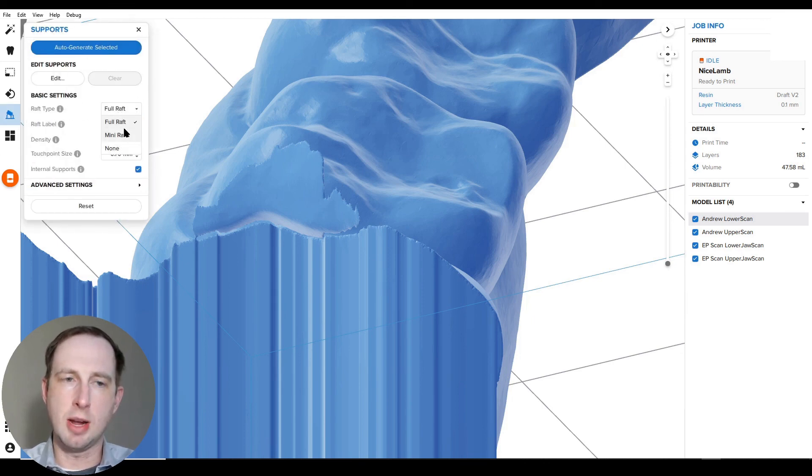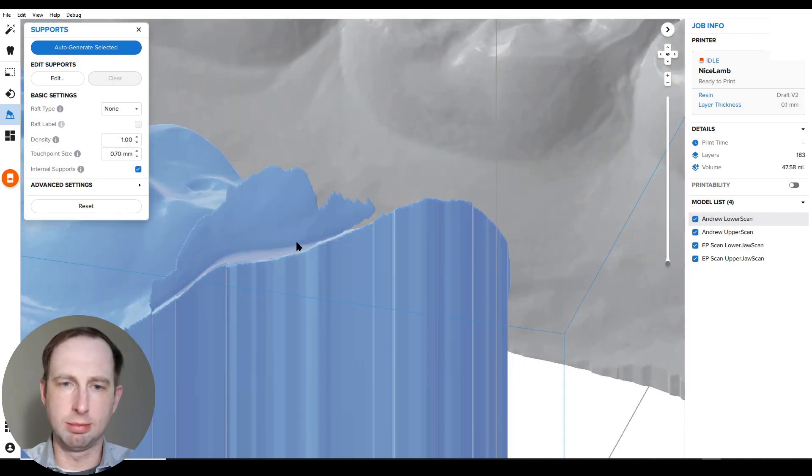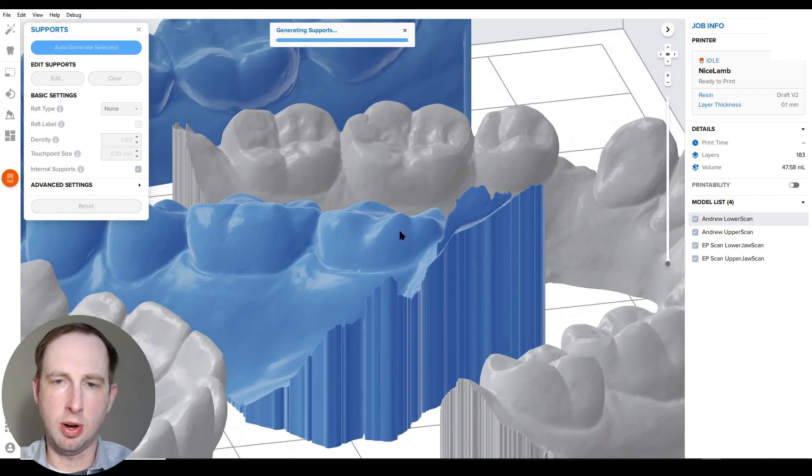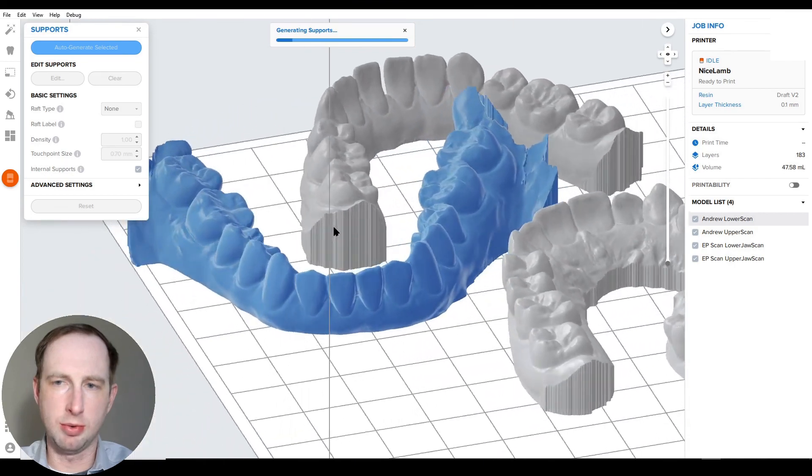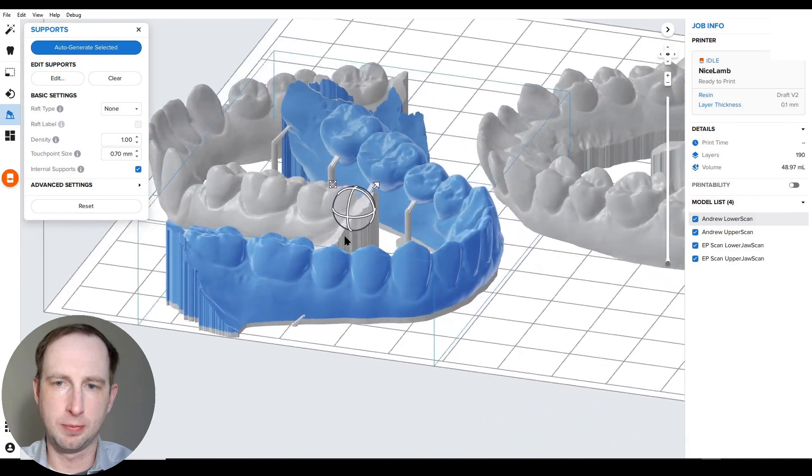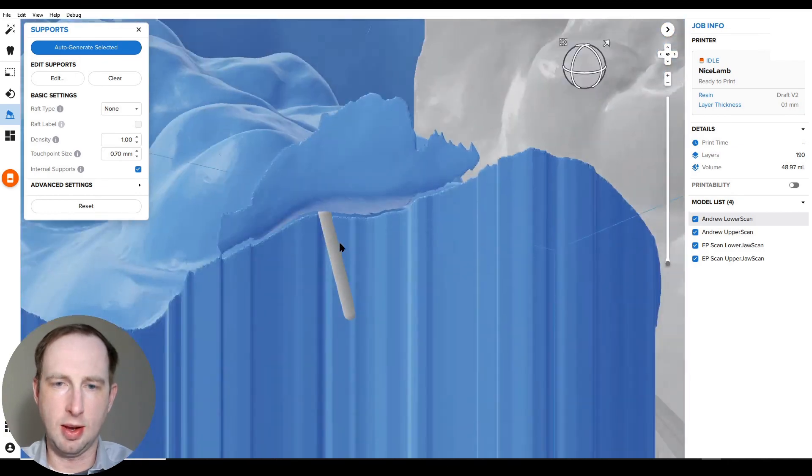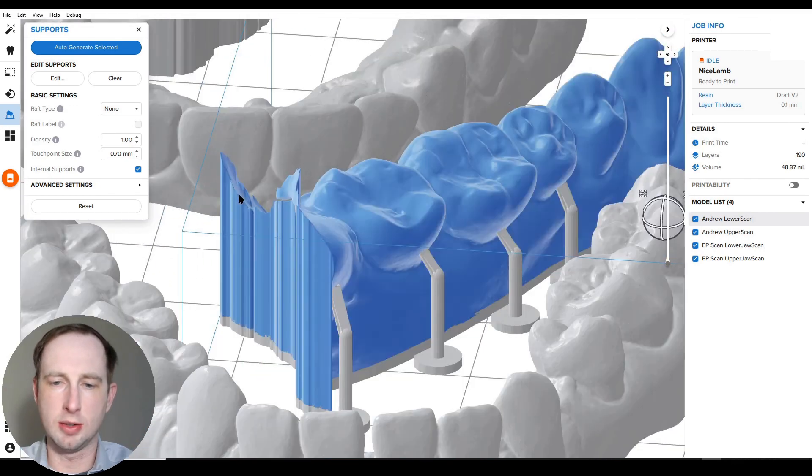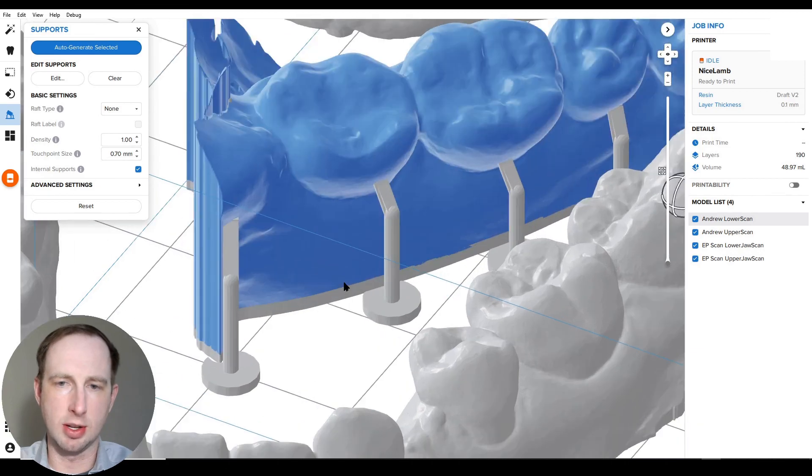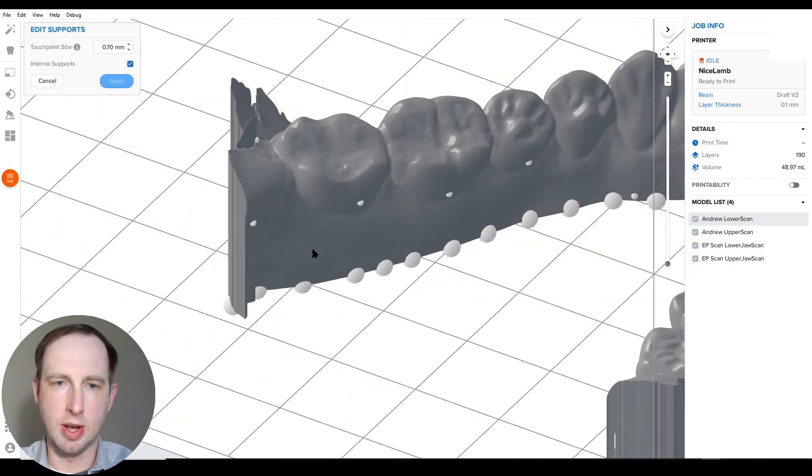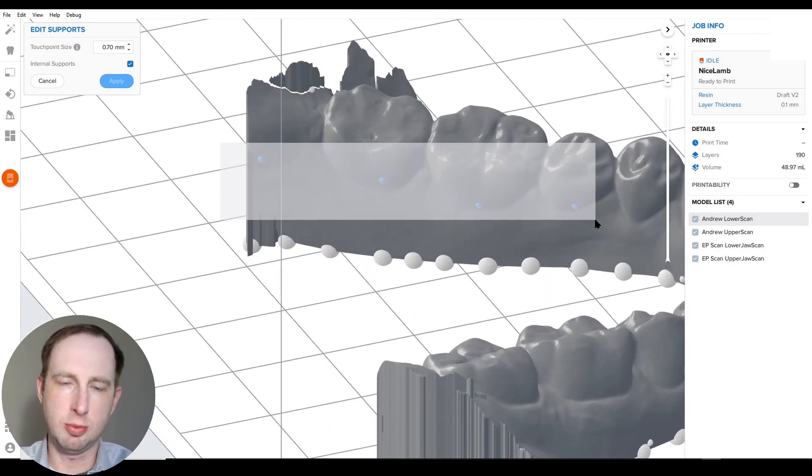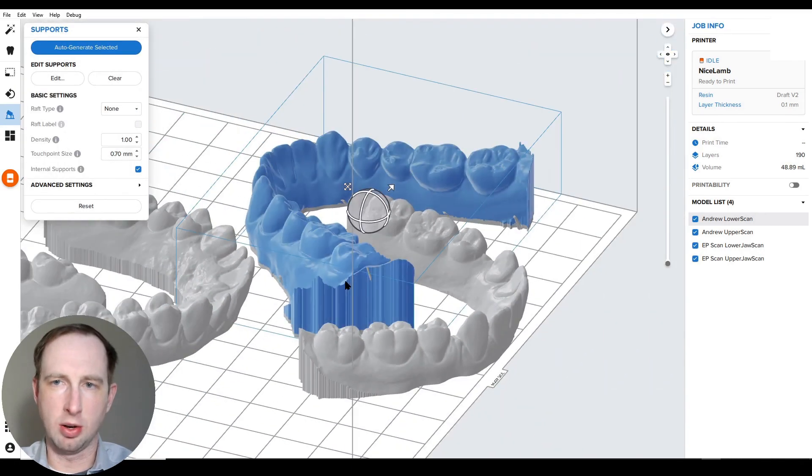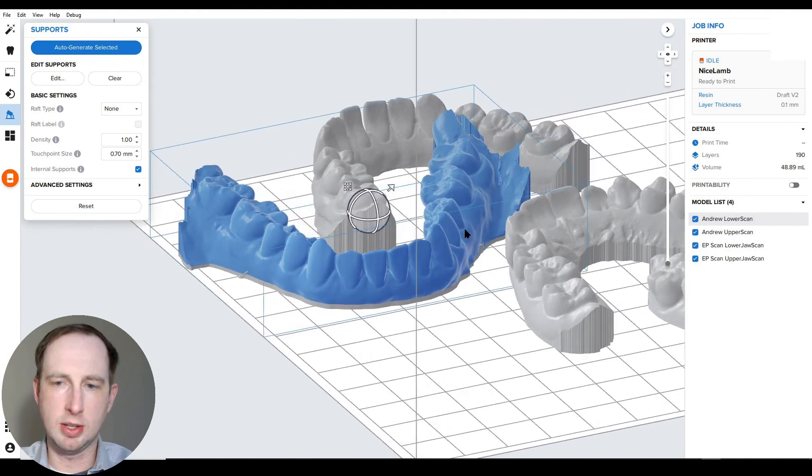The way to support these models flat to the build platform is you go into the supports menu, you change raft type to none. And I would just manually put three supports here, or you can auto generate the selected model only. This will automatically put supports where it thinks it needs it, which is probably only going to be in that area. There's not really much else that needs support. Yeah, so it's generated some, it's made this little support here, which is fine. You just don't want it to flake off and be on the bottom of your build tank or something like that. And I would actually remove these. The little trick here is you click and drag to select multiple touch points, delete, apply, and we're ready to go. We've got our support where we want it.